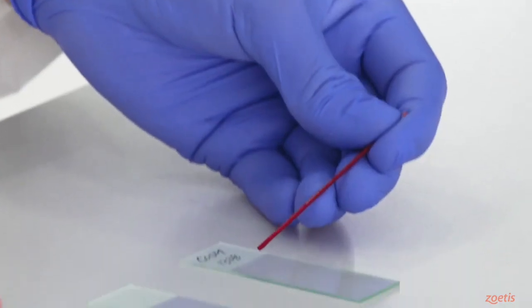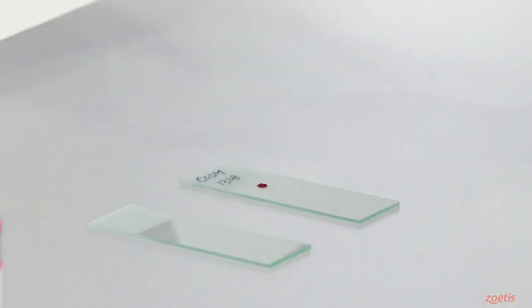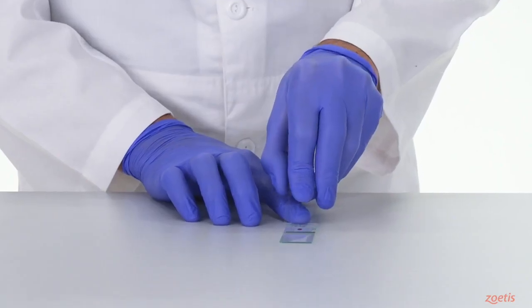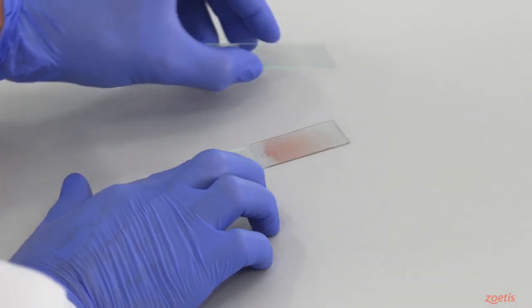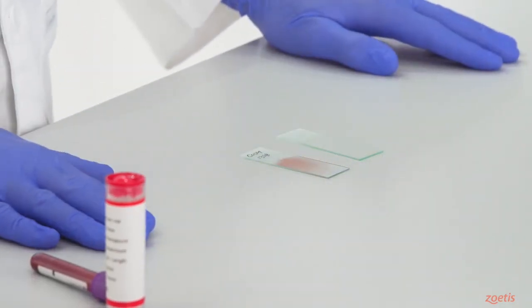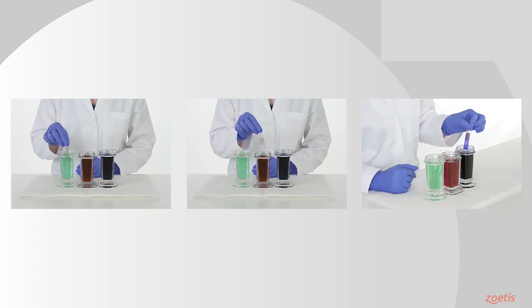The next step is to prepare a blood smear using industry best practices. After properly preparing your slide and allowing it to air dry, you will need to stain your slide.